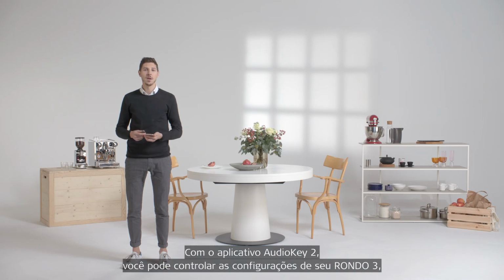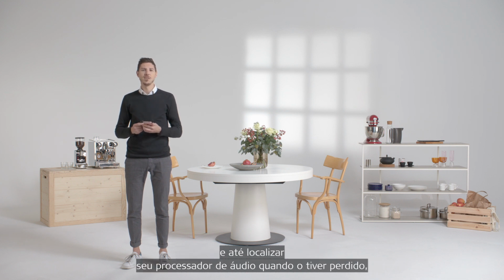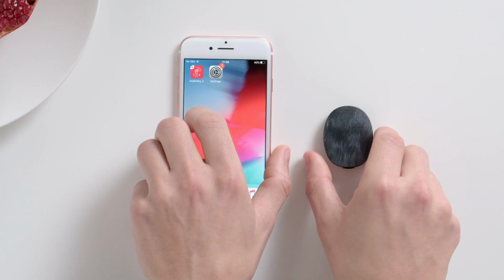With the AudioKey 2 app, you can control your RONDO 3 settings, check on your child's hearing, view detailed stats, and even locate your lost audio processor, all from your phone. But first, you need to pair it. Let's see how you do it.